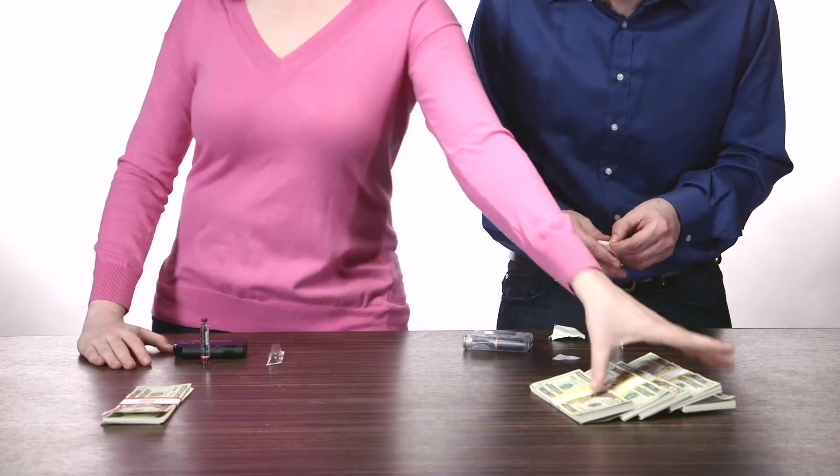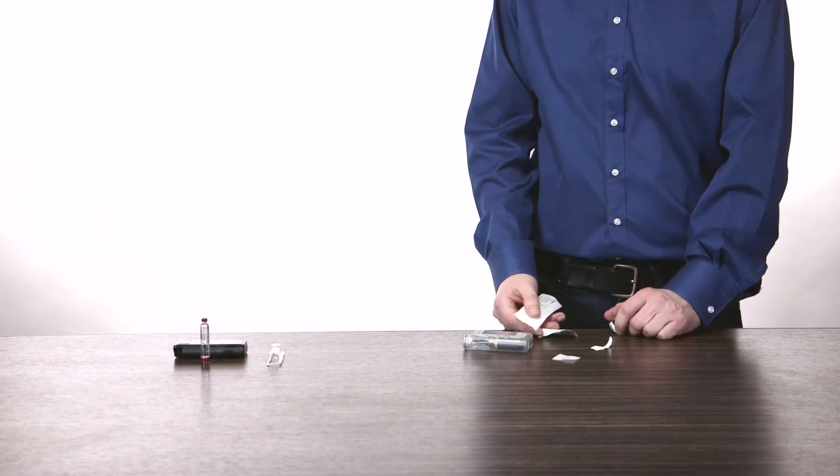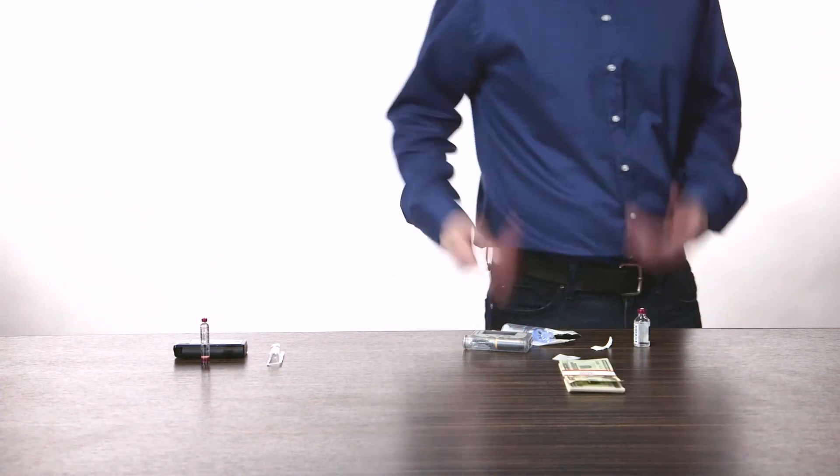Reservoir prep is easy and fast with the Snap pre-filled insulin cartridges. But don't worry — for a fraction of the winnings, you can have a Snap pump too. Snap won't leave you hanging.